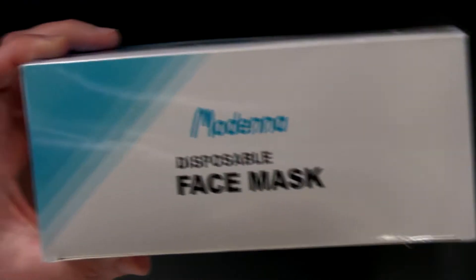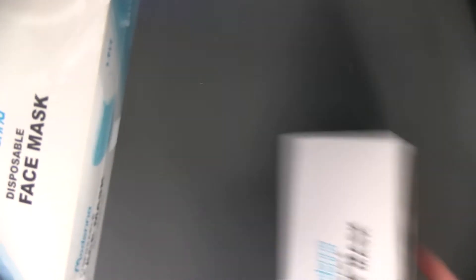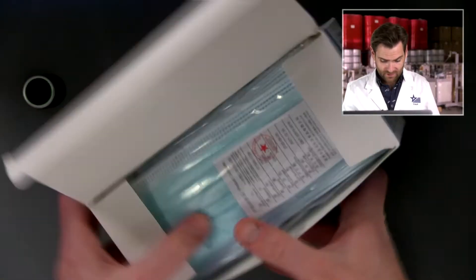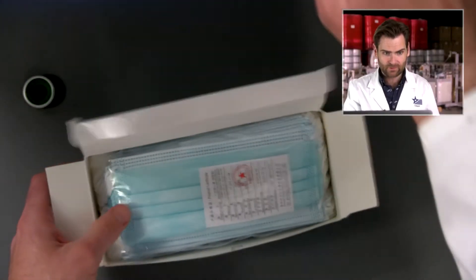Love this. By the way, not Moderna — don't be confused, that's a vaccine, this is a mask. Very confusing. It's pretty good. It looks like a pack of a hundred — actually we bought 50, but two packs showed up. So I guess Amazon was doing a buy-one-get-one sale but they didn't tell us. They just gave us one. That's nice, thanks Amazon.